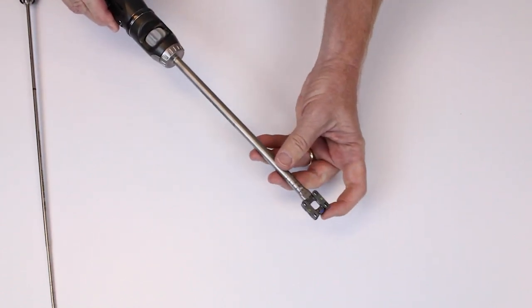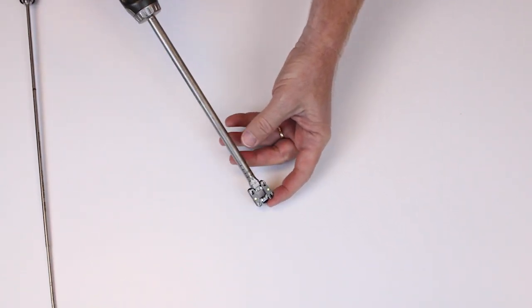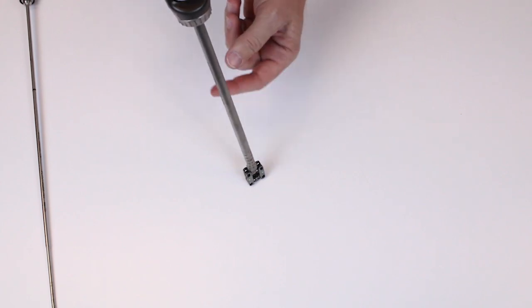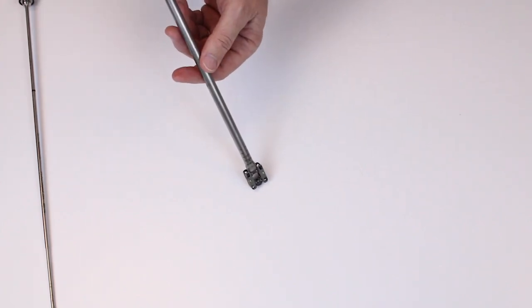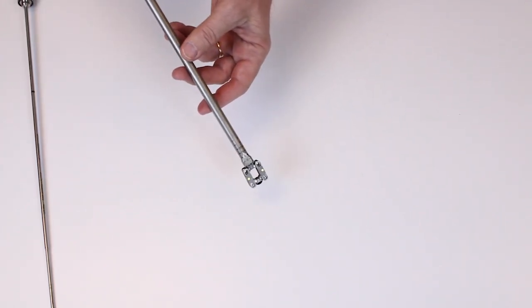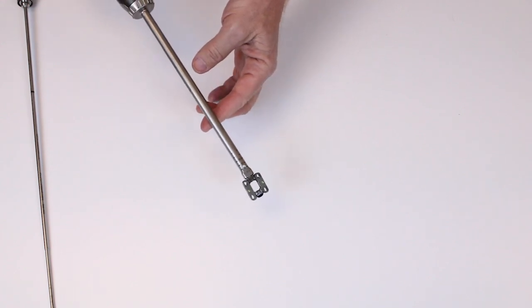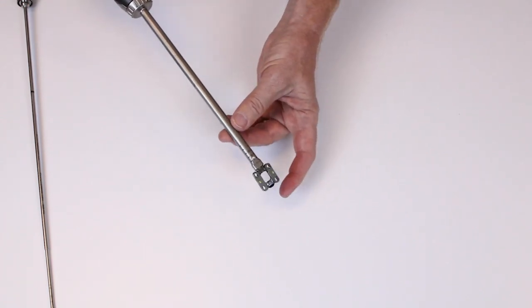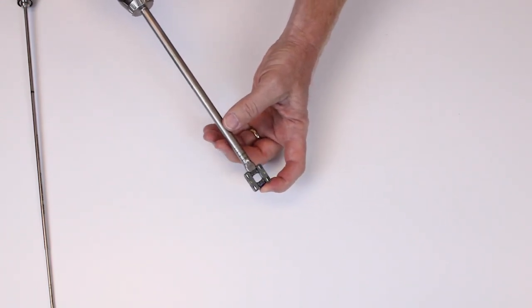It's important to keep the implant on a hard surface or keep it expanded. Otherwise, it'll appear to be floppy. In a clinical setting that won't happen, but in a demo we want to make sure that it appears very rigid.